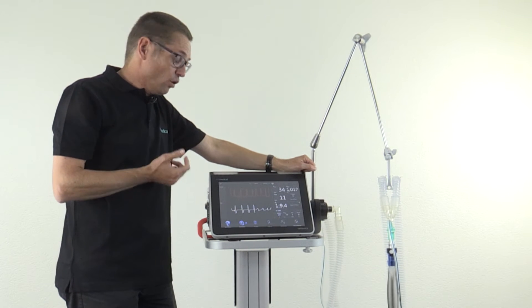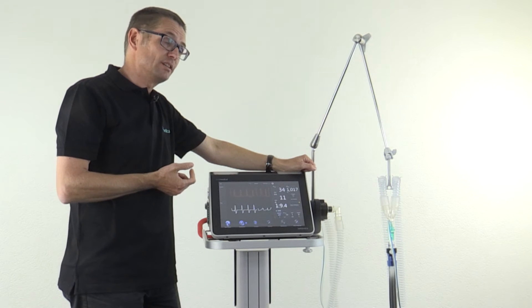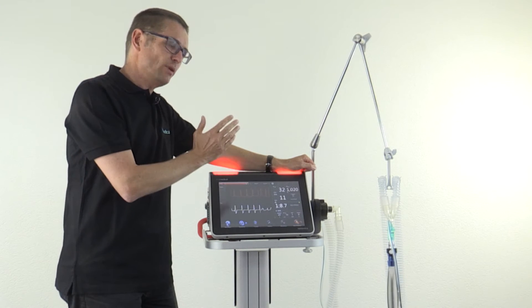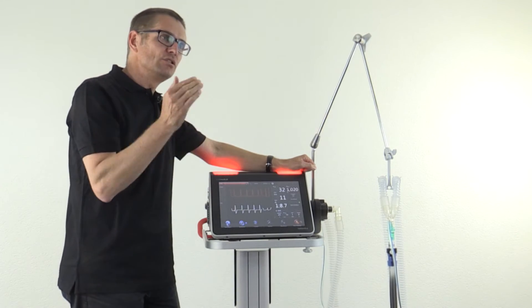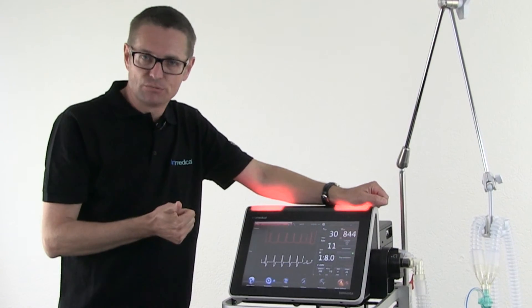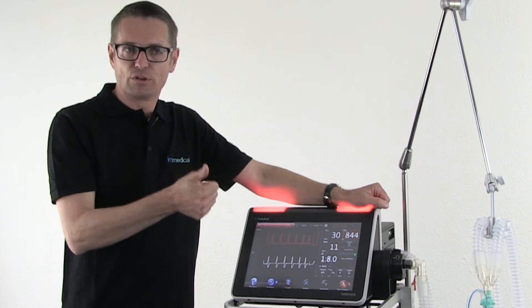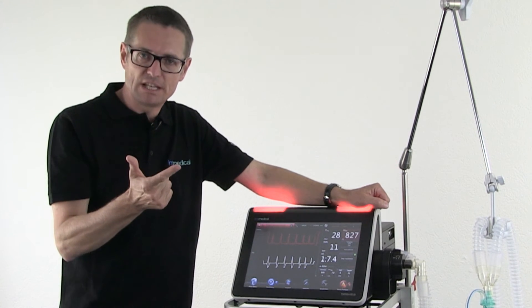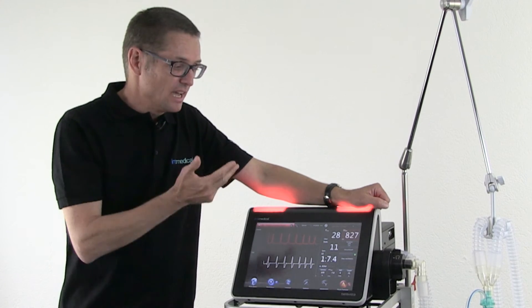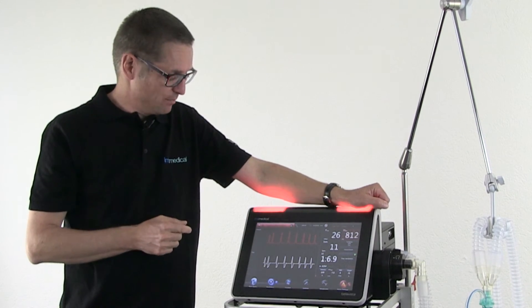AVM can also deal with a spontaneously breathing patient. AVM follows the patient all the way from intubation to extubation. Whereas in a conventional world you need pressure control or volume control ventilation, then SIMV, then CPAP — AVM goes all the way through with the patient.